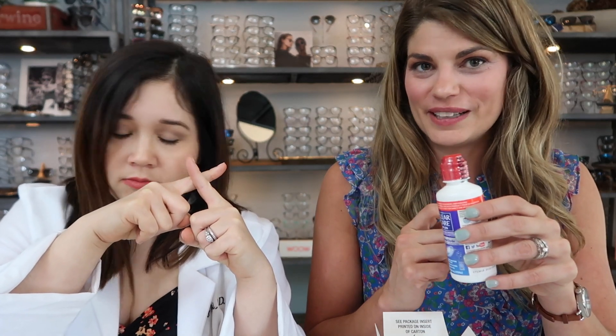We told you about multi-purpose last time — this is completely different. This red top here means fire. Do not put that in your eye, ever. If you put this in your eye, your eye will be that color right there. Many regrets.